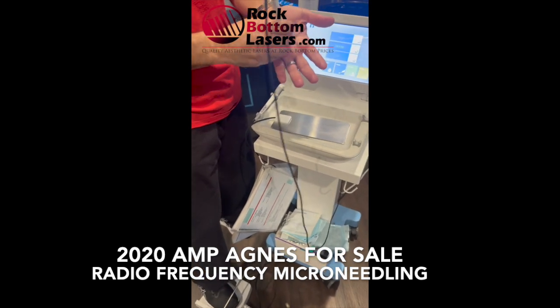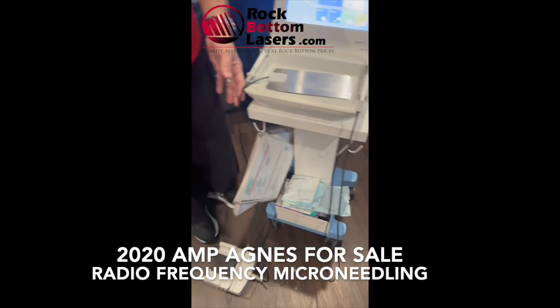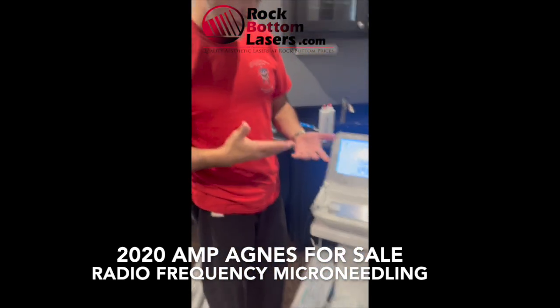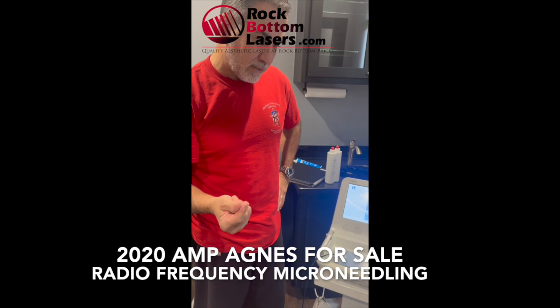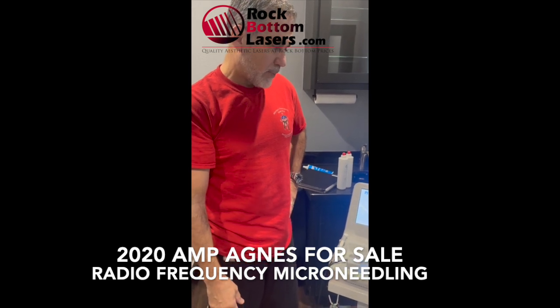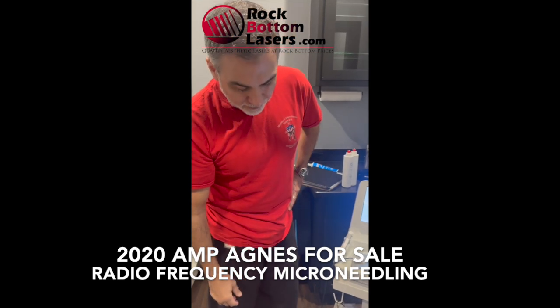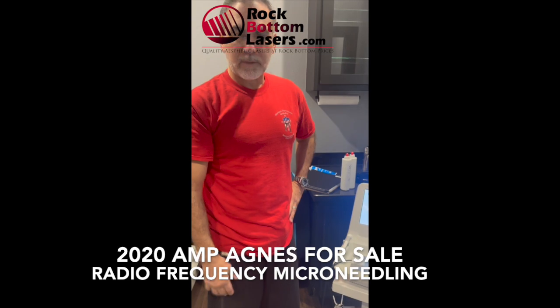As for how many needles we have — we only have one F1A needle. The rest: we have about 14 F3As, and then about 10 or so of each of the others. The W3B is the one we only have one left of — there's not a lot. Those are the ones we use the most, mostly in combination with the Scarlet.